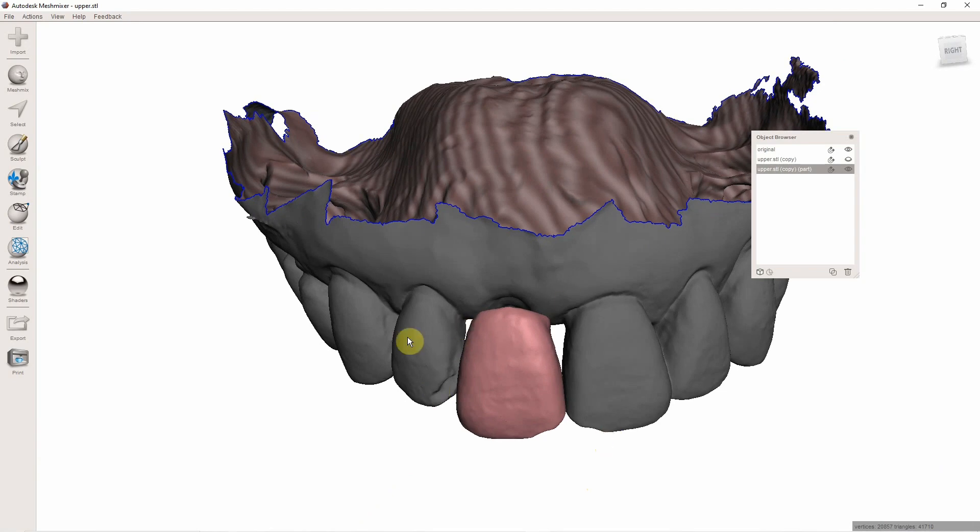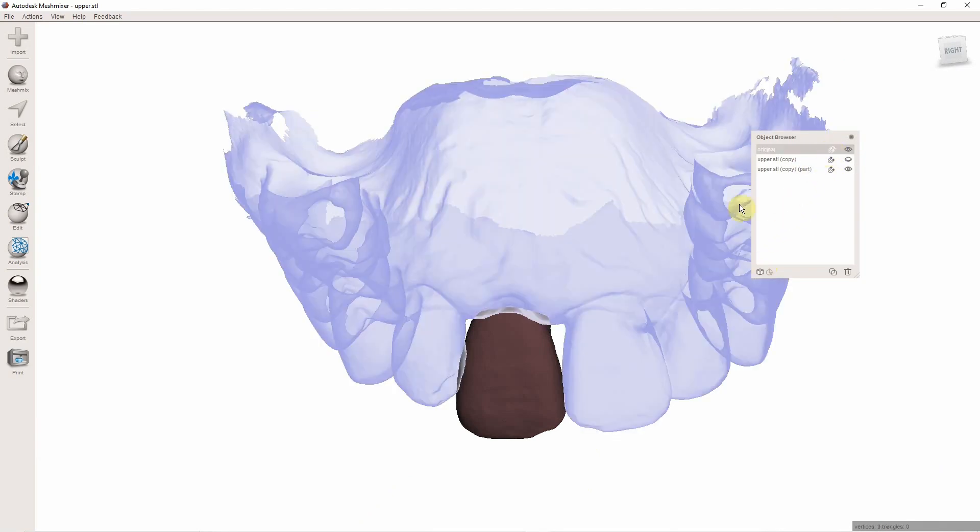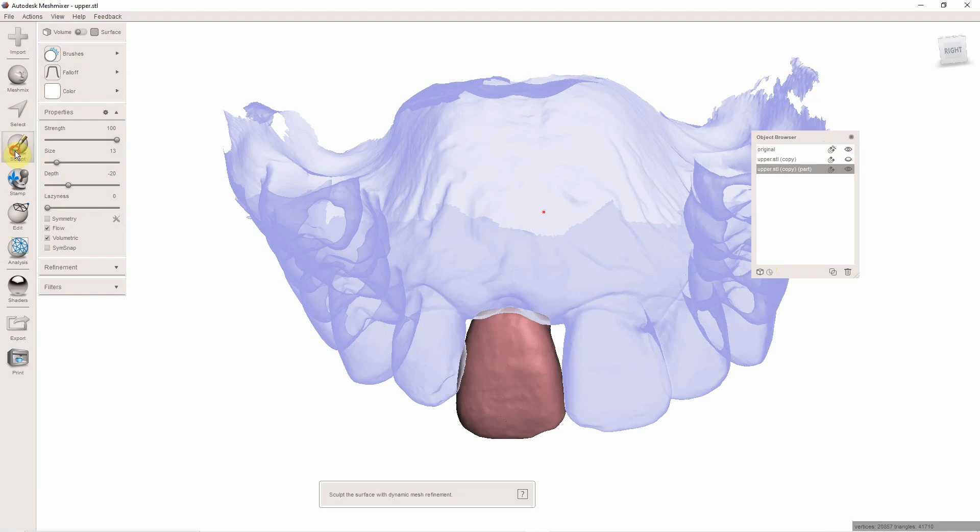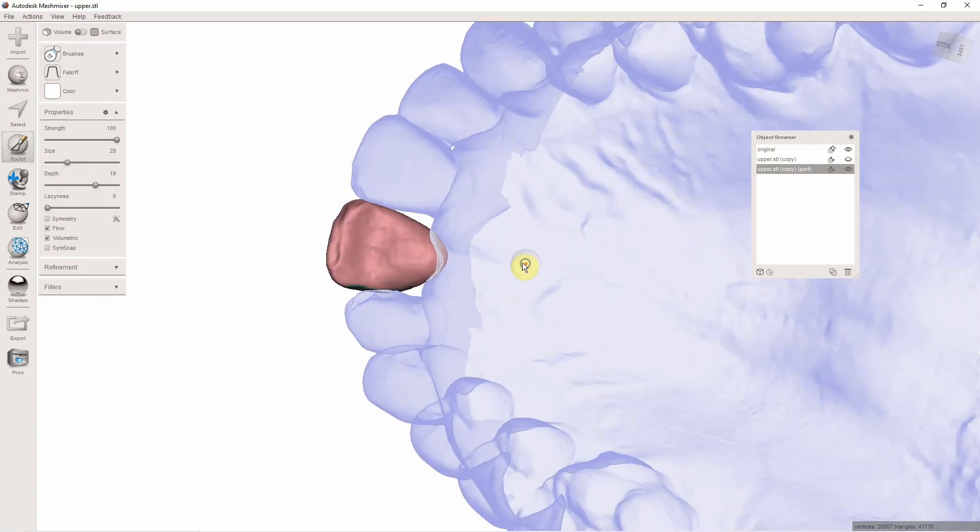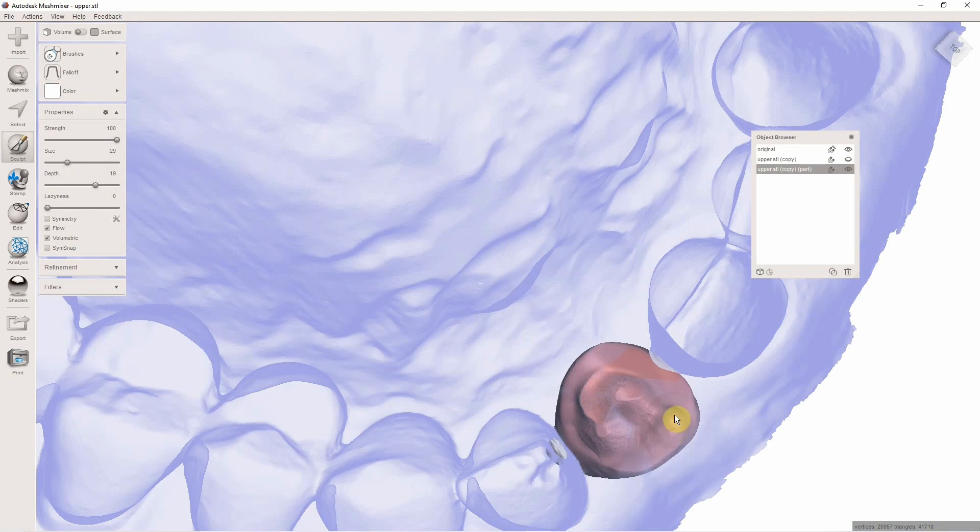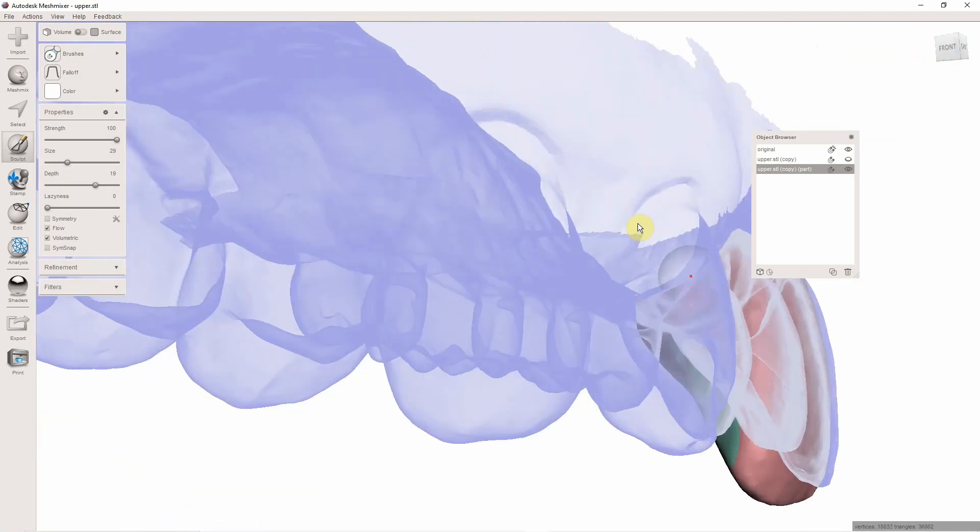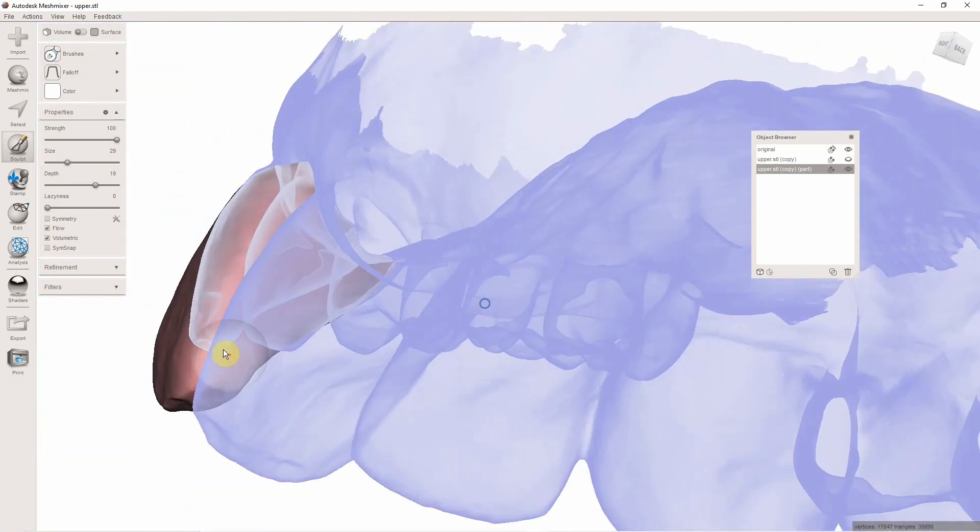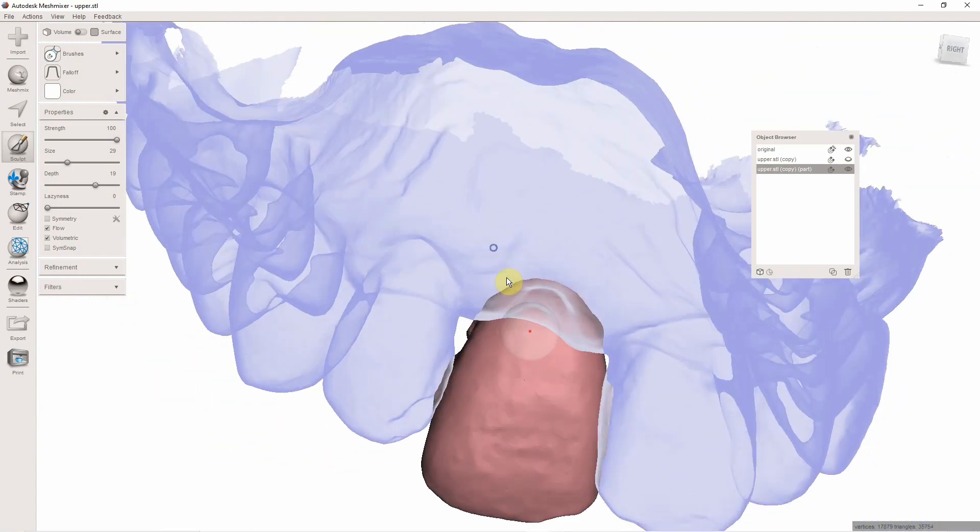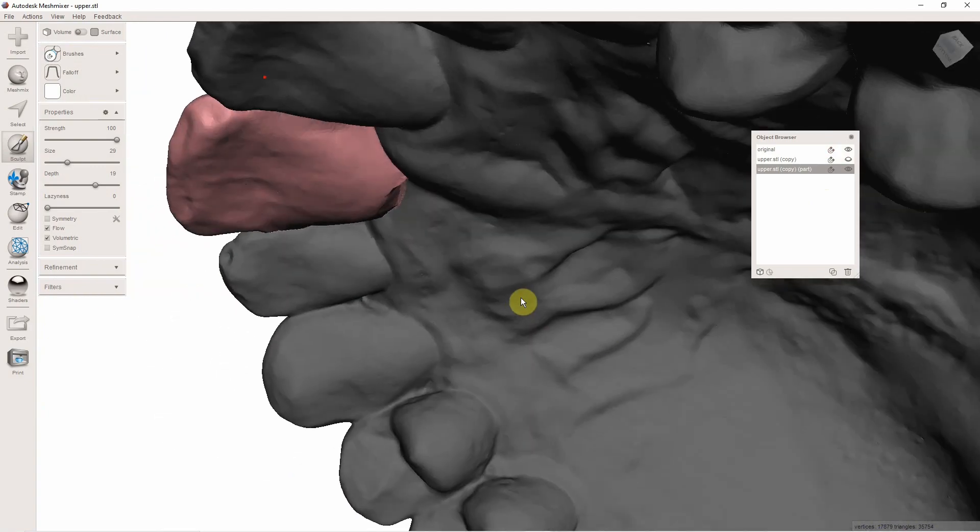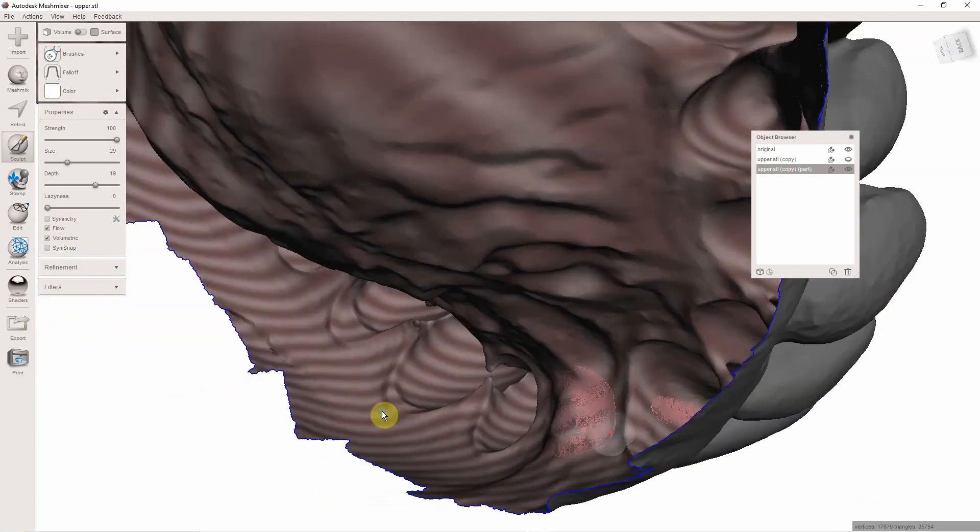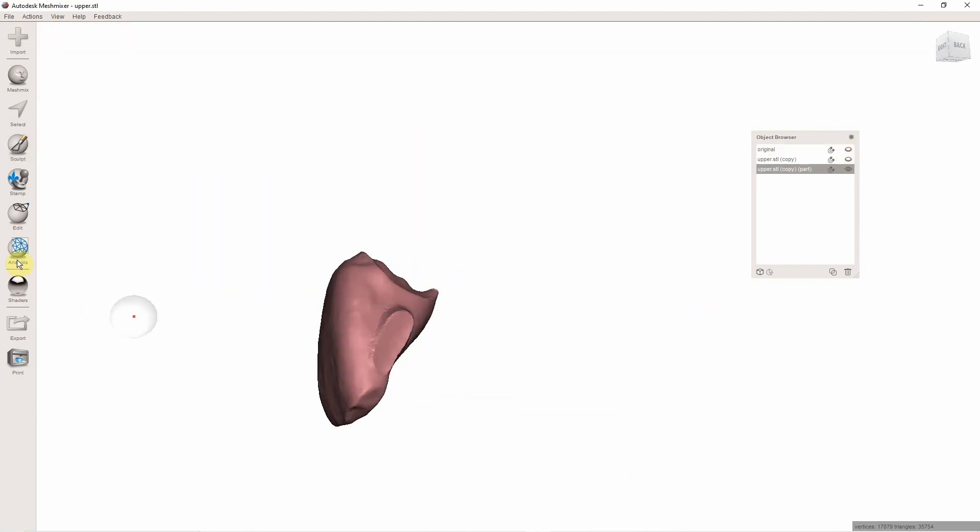Now what I need to do is make my wings and adjust my proximal contacts as well in my pontic pressure. Let's do the proximal contact and pontic pressure first. So I'm going to turn this model magnetic by hitting this little - my original model is going to be magnetic, which means it's going to turn blue. I'm going to select my tooth and go to Sculpt, Brushes, Attract. I'm going to put this 20, 30, and I'm going to come to my pontic space. And now it's going to sculpt perfect tissue pressure. The pressure will be like zero, it'll be just touching the tissue. And then for my proximal contact, I'm going to do the same there.